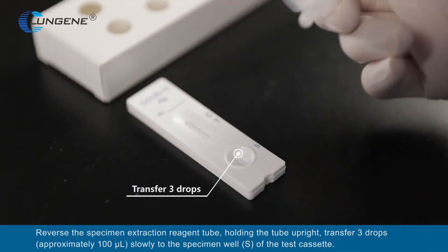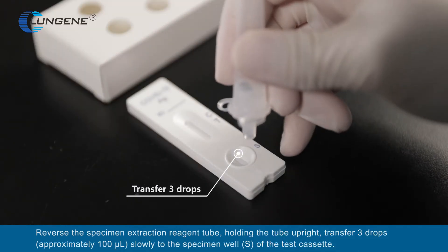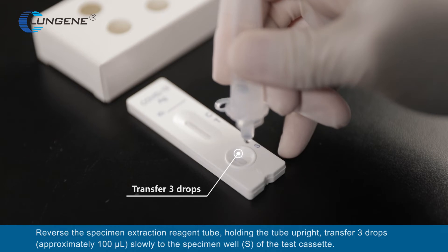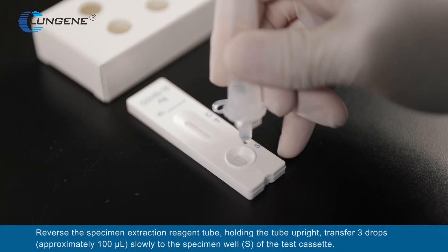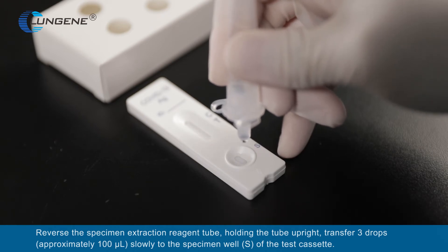Reverse the specimen extraction reagent tube. Holding the tube upright, transfer 3 drops slowly to the specimen well (S) of the test cassette.